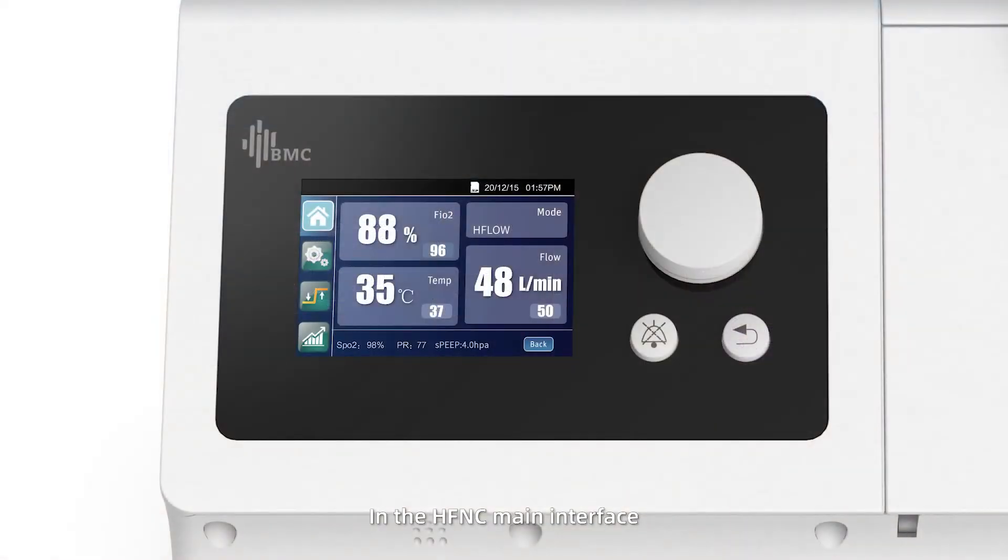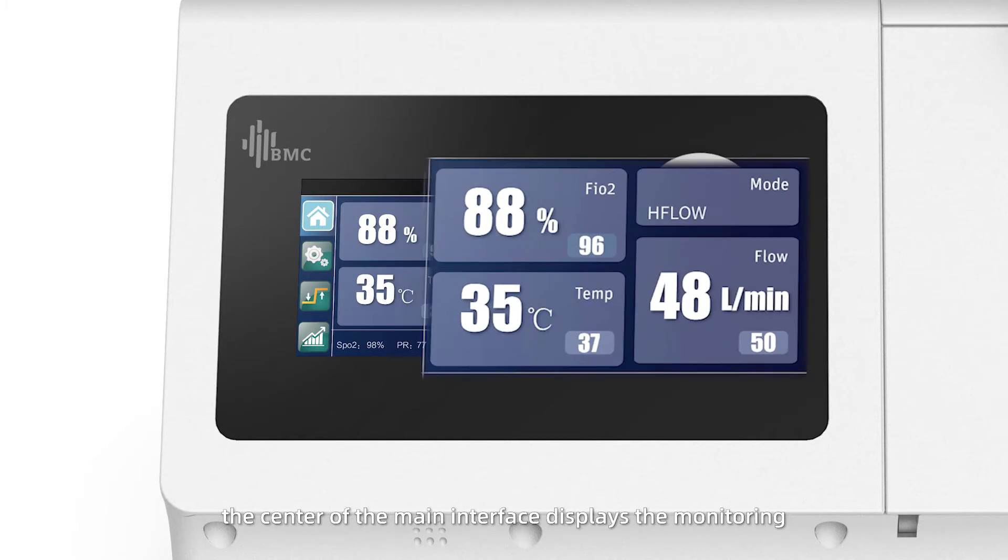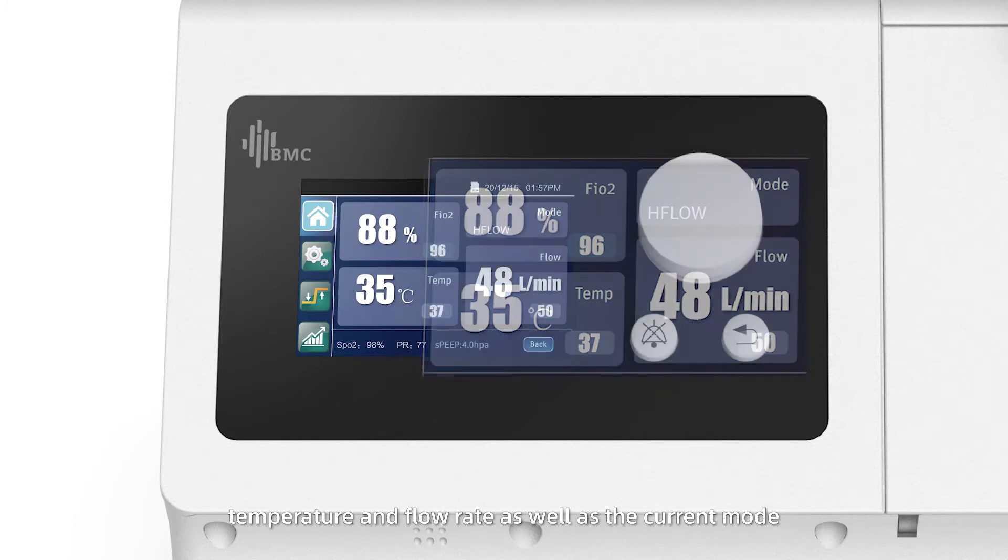In the HFNC main interface, the center displays the monitoring and setting values of oxygen concentration, temperature, and flow rate, as well as the current mode.